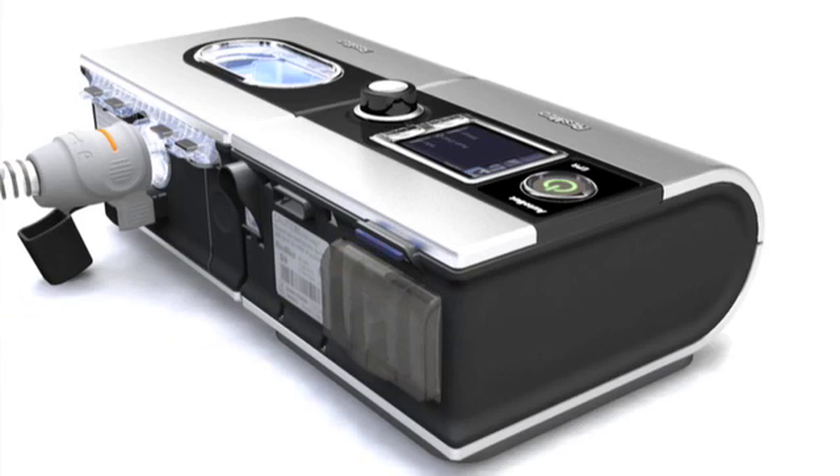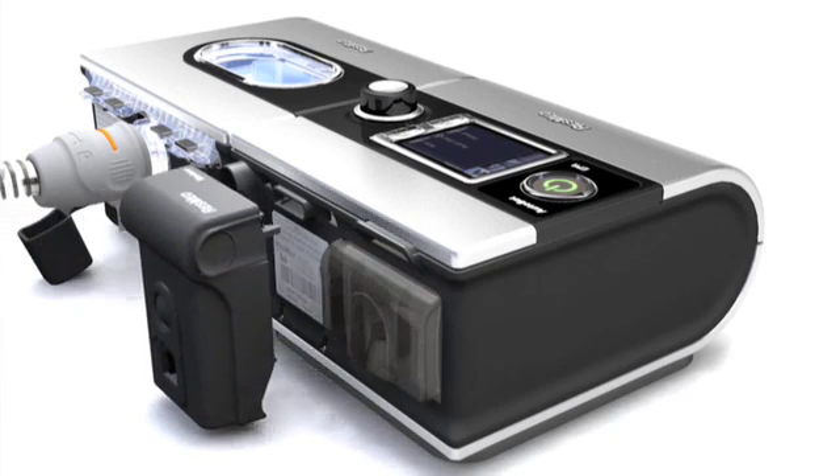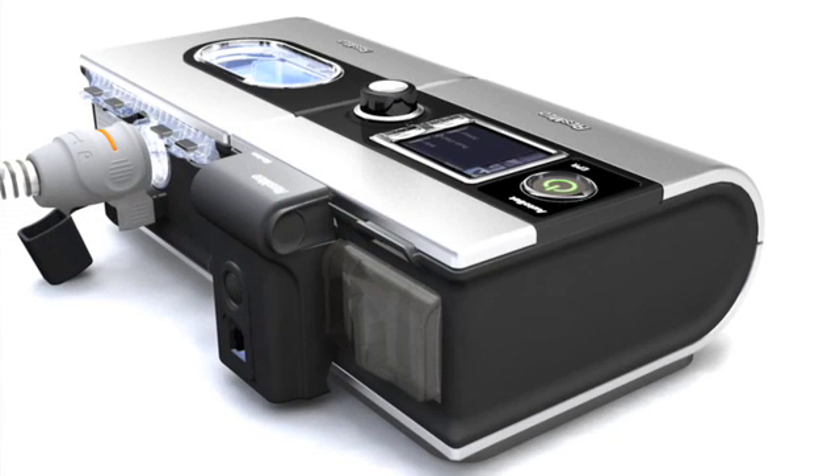We offer them an SD card, which is an off-the-shelf SD card, and we'll also offer them a wireline modem and a direct cable connect option.